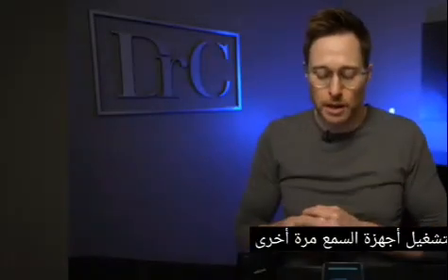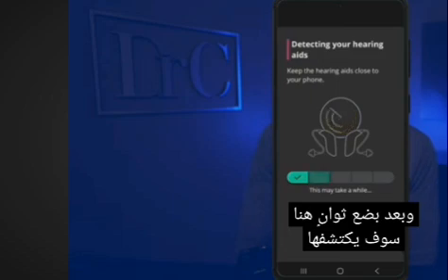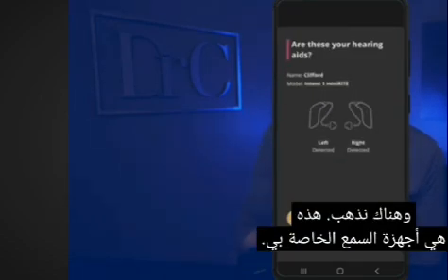First, turn the hearing aids back on, because for the next few minutes they will be in pairing mode. Then we can go ahead and click on next step. It is now searching for my hearing aids, and after a few seconds here, it's going to detect them and it's going to ask me to pair them. And there we go, those are my hearing aids.